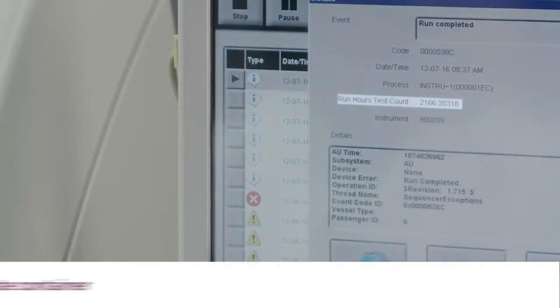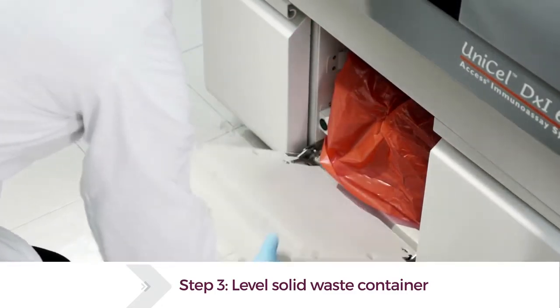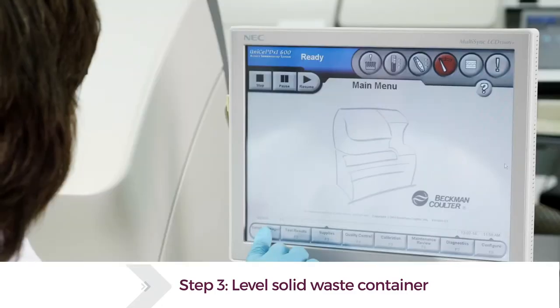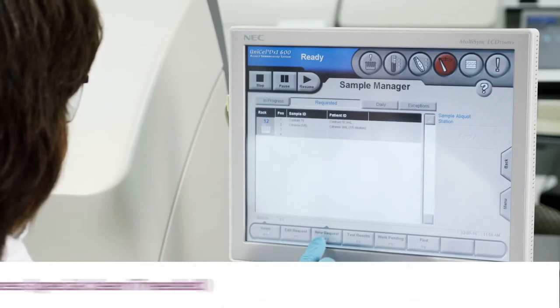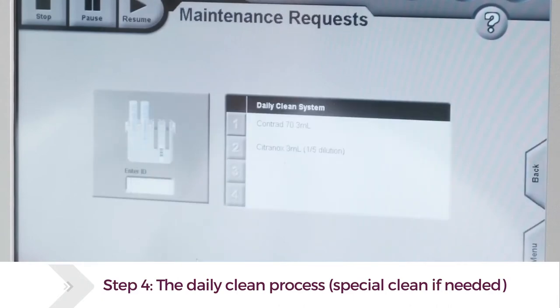Once recorded, users simply shake the solid waste container to ensure contents don't pile up and cause an interruption in the system. Next, operators run the daily clean routine, a process greatly simplified by the intuitive system software.